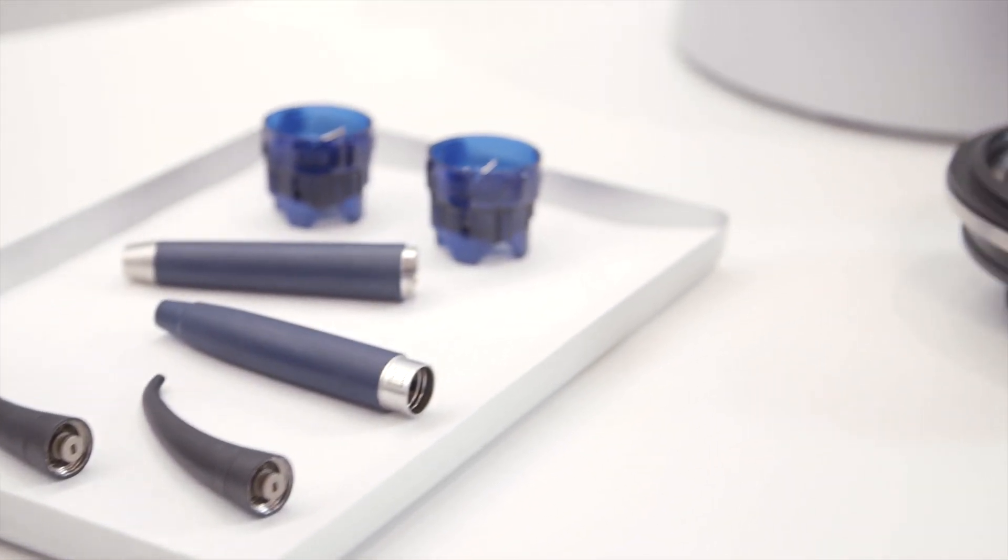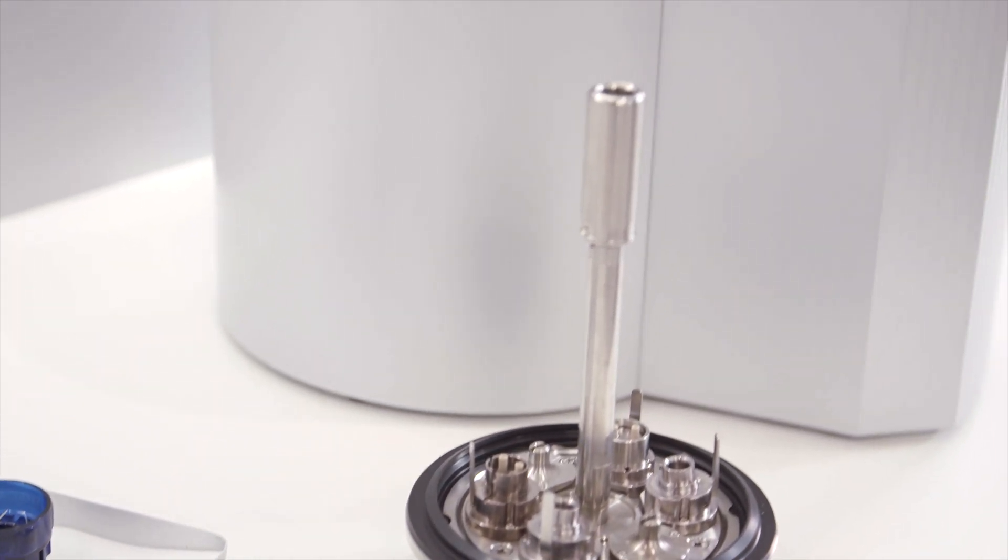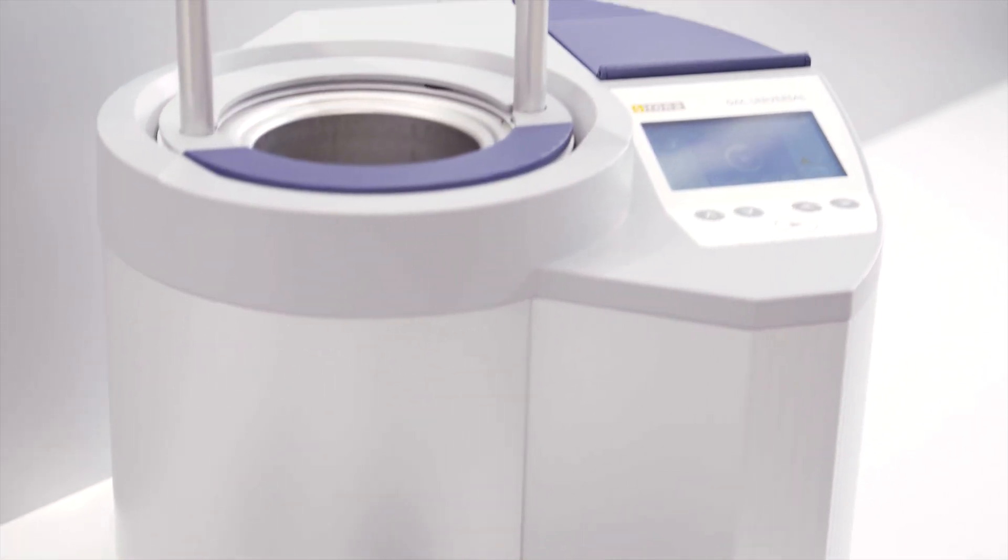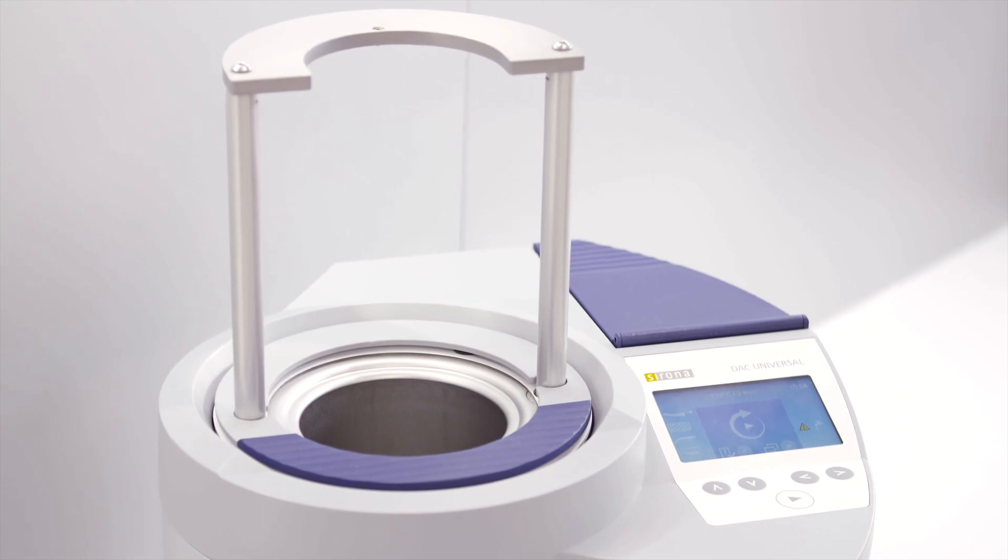The flex lid is used to clean and thermally disinfect ultrasonic hand pieces and tips, as well as nozzles for the multifunction syringe.